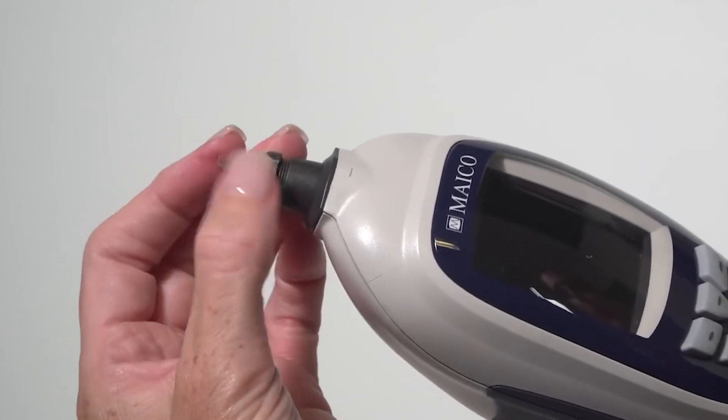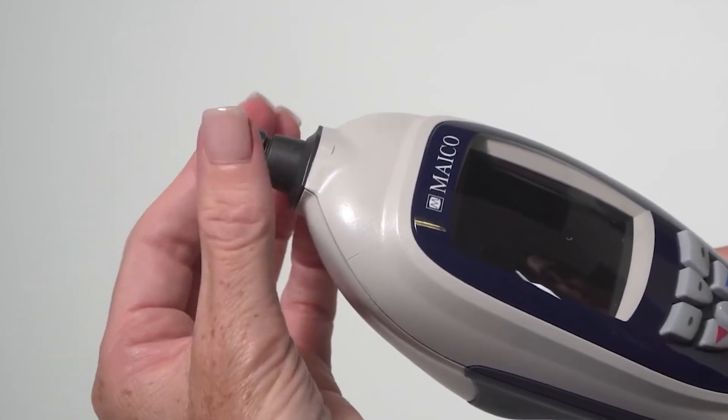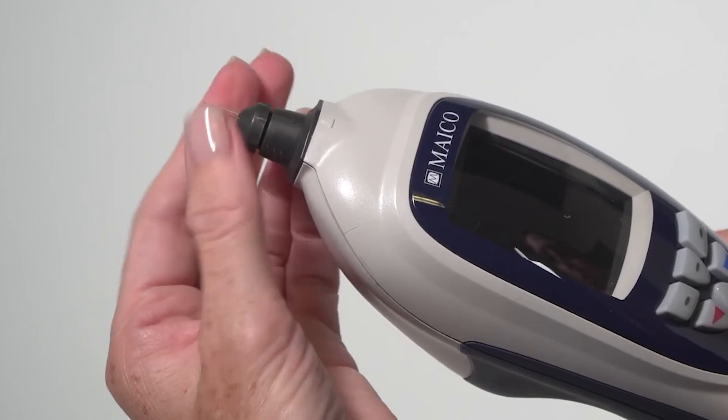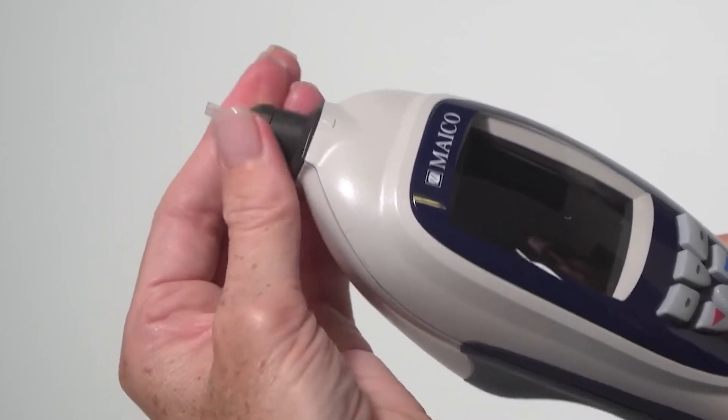The force of tightening the cap will tighten the screw sufficiently. Once this is tight, do not overtighten.